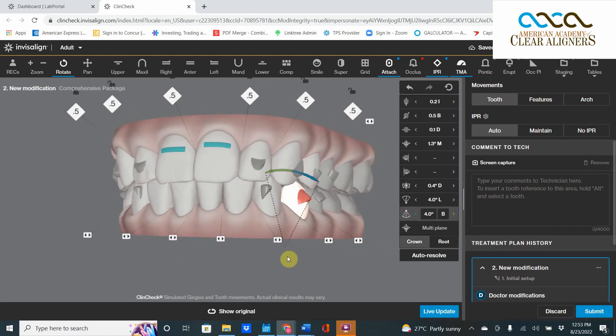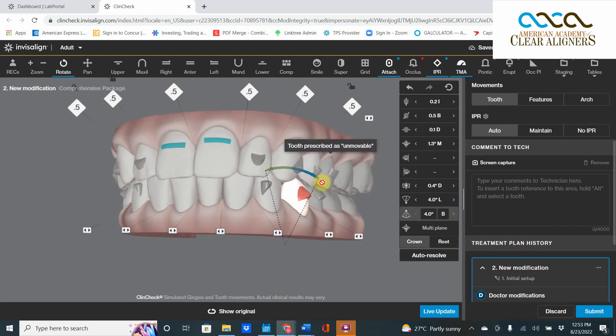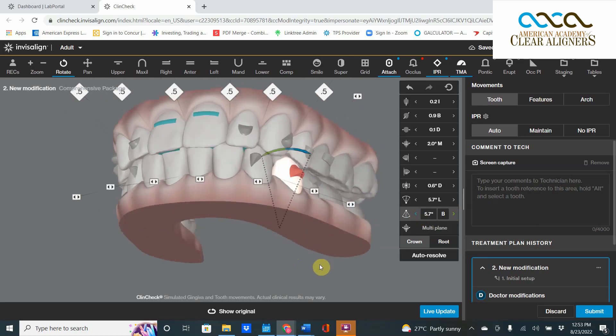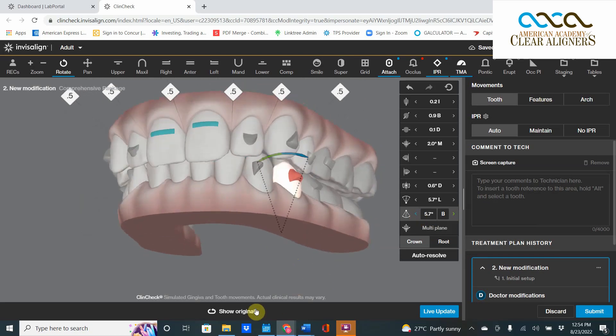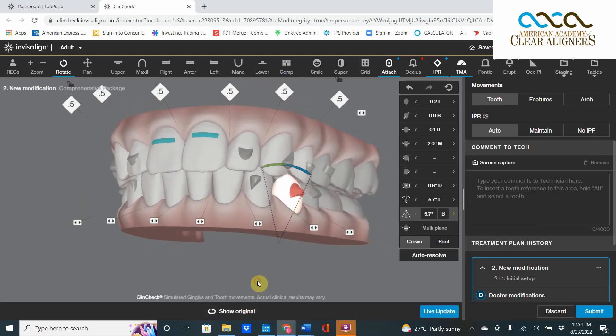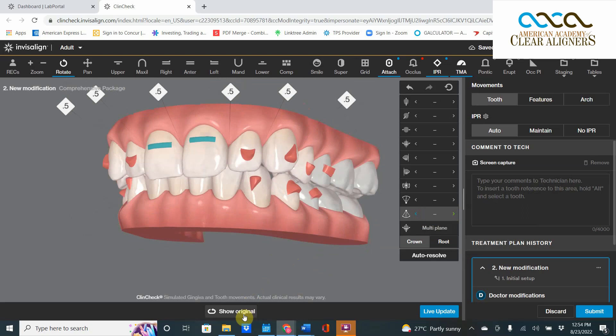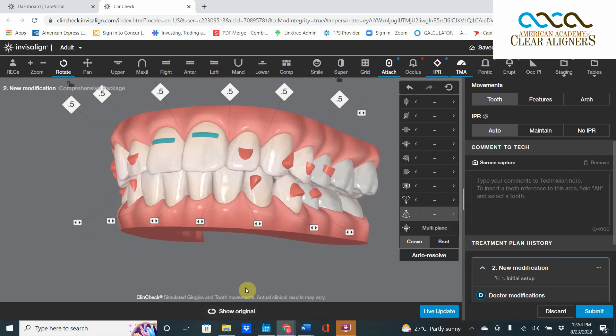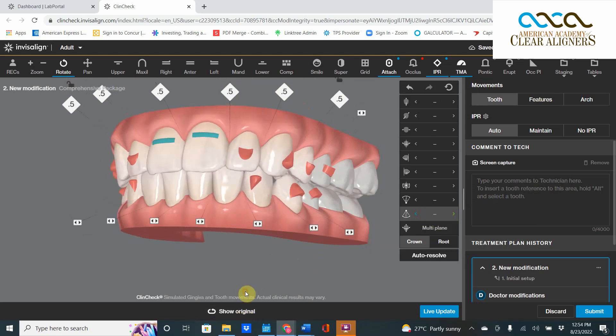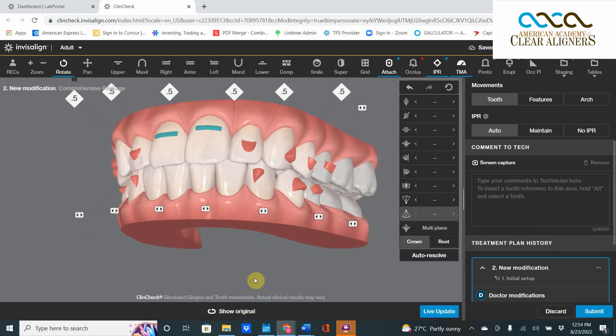it closes the occlusion very nicely. So I'm going to come all the way out to that thing, boom, until I'm touching that tooth real nice. So it ends like that. But in reality, the ClinCheck was supposed to end like that, but now it ends like that. That's a much better occlusion.